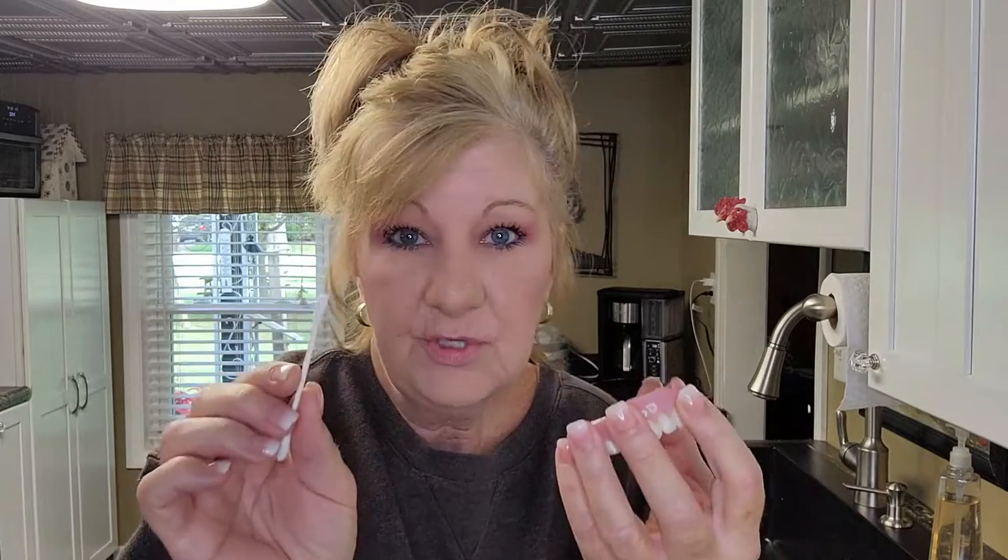Like I said, you can use a wet Q-tip — my grandma used to do this. Karma — I used to hide my grandmother's teeth! Wet Q-tip, toothpick, or finger — just place the denture in and that's it. That's all for now, because you're probably still going to have sore spots. I started doing this about two weeks after my full mouth extraction, just down the center.